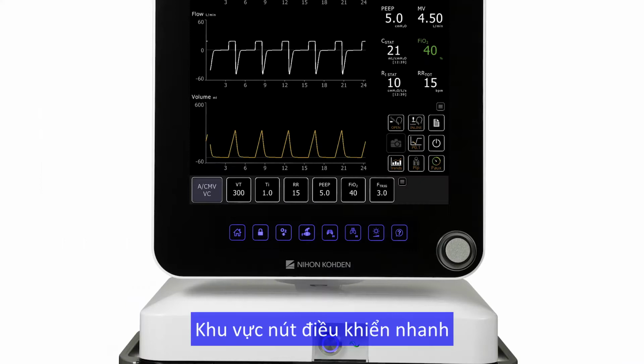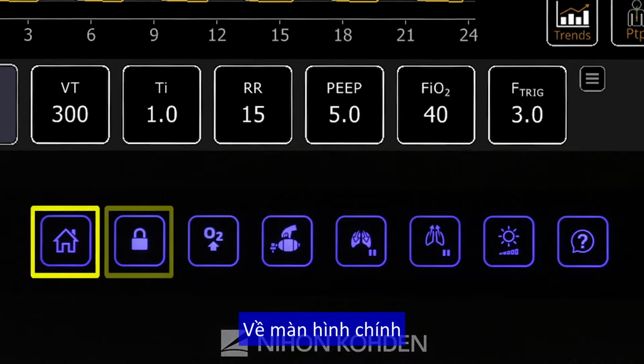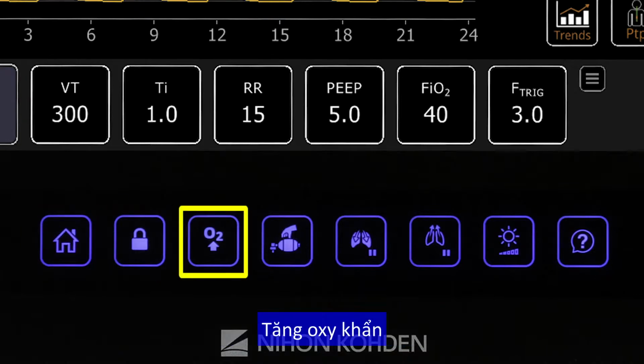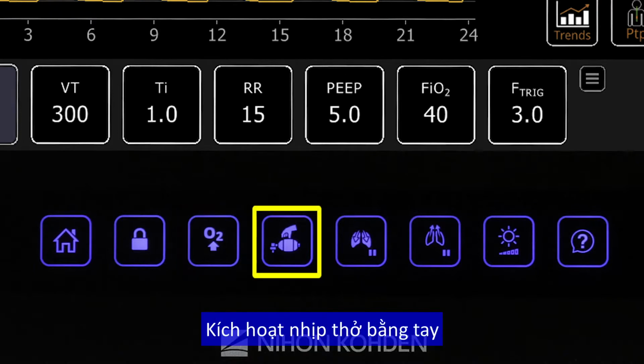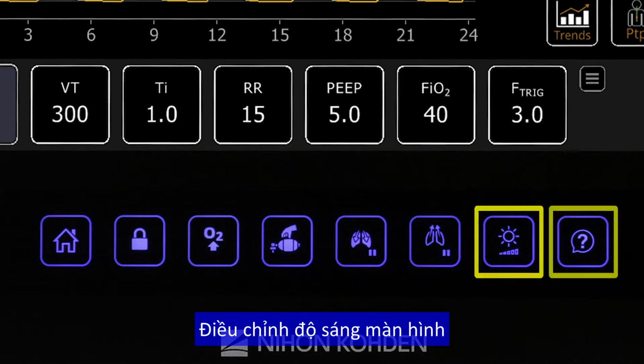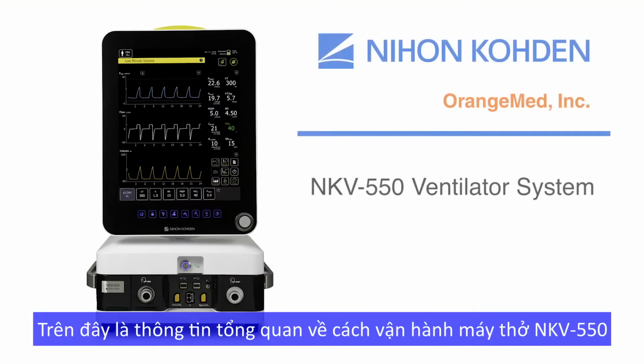The Quick Access area provides buttons that allow clinicians to navigate to the home screen, lock or unlock the panel, provide elevated O2, deliver a manual breath, perform an inspiratory or expiratory hold maneuver, adjust screen brightness, and get access to on-screen help. This concludes the NKV-550 system overview.